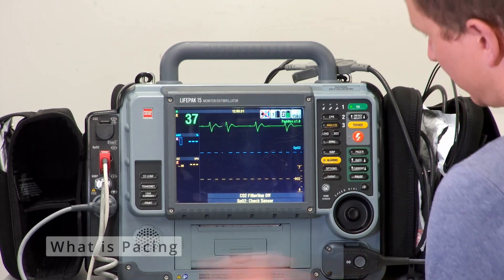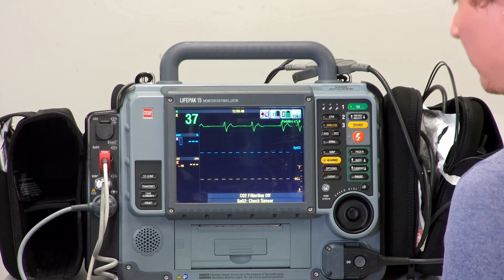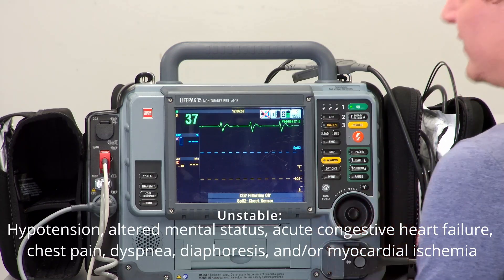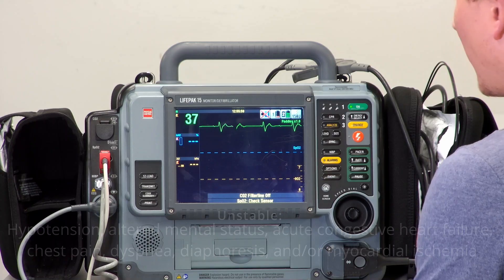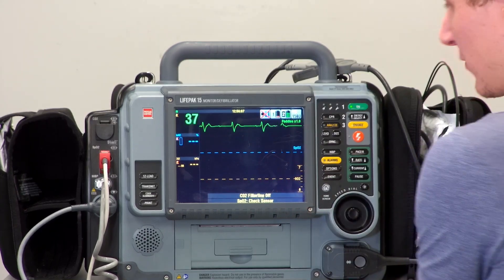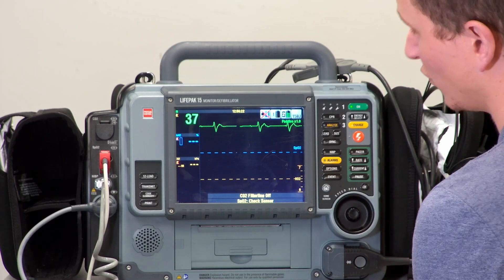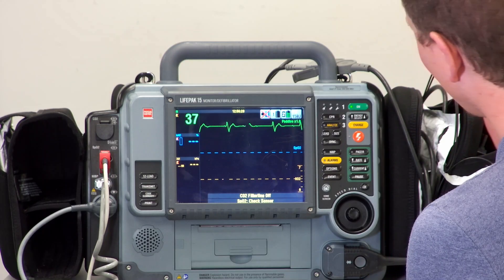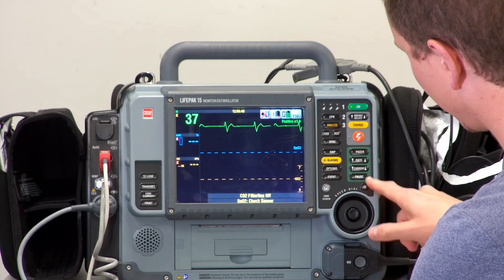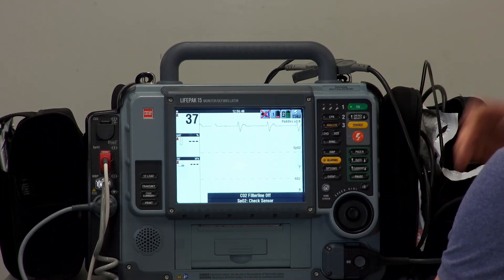Let's move on to pacing, which is kind of the same as cardioversion but the opposite. Cardioversion slows a heart rate that's too fast; pacing makes a heart beat faster when it's beating too slowly. With a bradycardia, assess whether the patient is unstable — signs of shock include hypotension, decreased level of consciousness, chest pain, and signs of poor perfusion. Remember: treat a rhythm that is causing the patient to be sick, not a sick patient who has a slow rhythm. For example, don't pace a hypoxic patient — reverse the cause first. There's also a small button below the green box to change monitor contrast if you're in bright daylight.